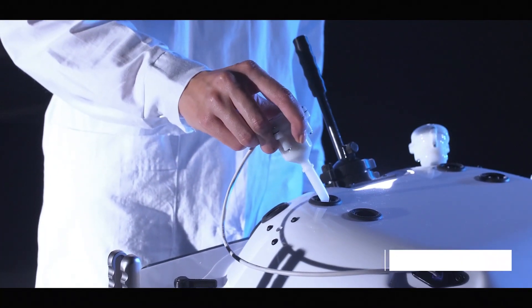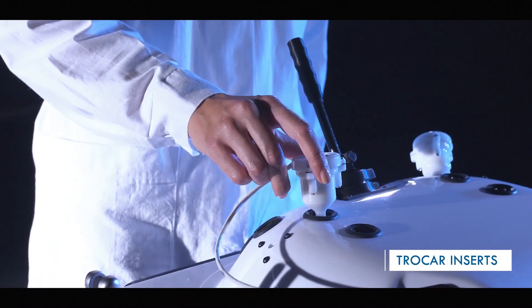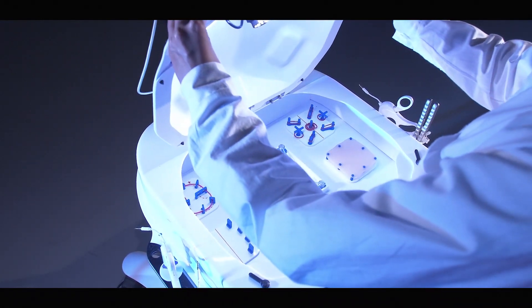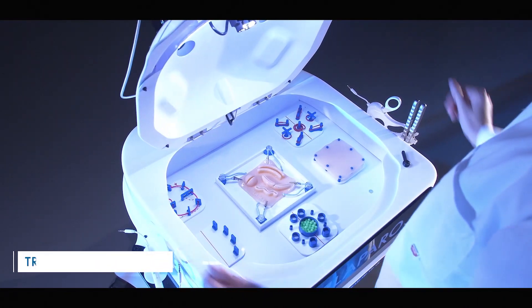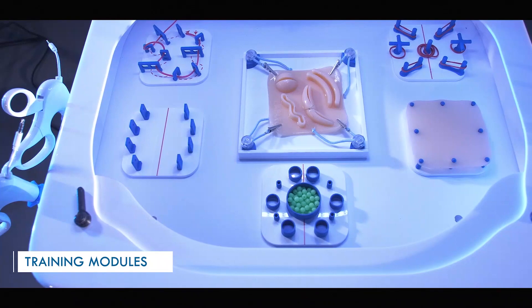The device has many properly placed inserts for the trocars. Different modules allow the training of both basic and advanced surgical skills.